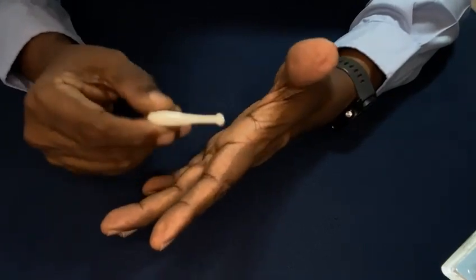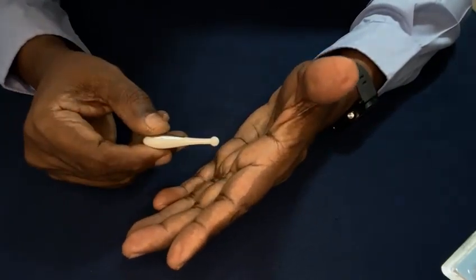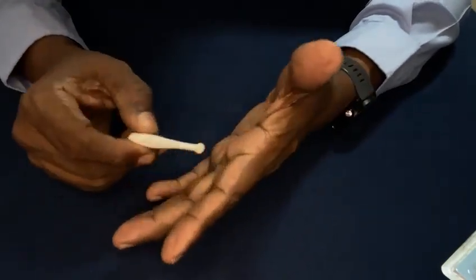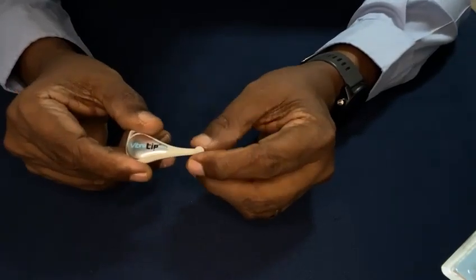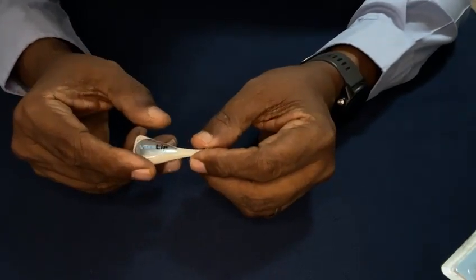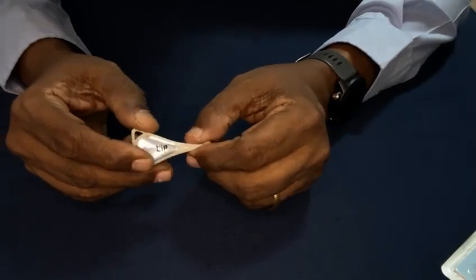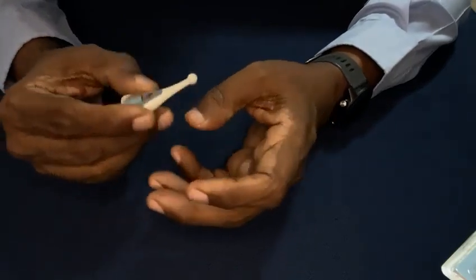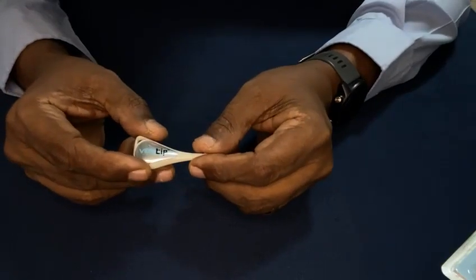Some clients are using it on multiple spots, even six spots per foot. Some of them are using only on the great toe. If we are using six spots per foot, that means 12 spots per patient, the battery will last about 250 patients. That's our experience. But when you are doing only one spot like great toe, then the count will increase much larger.